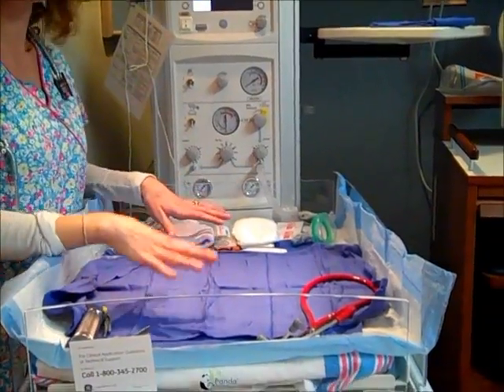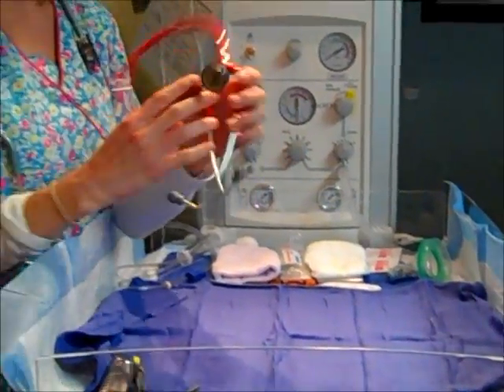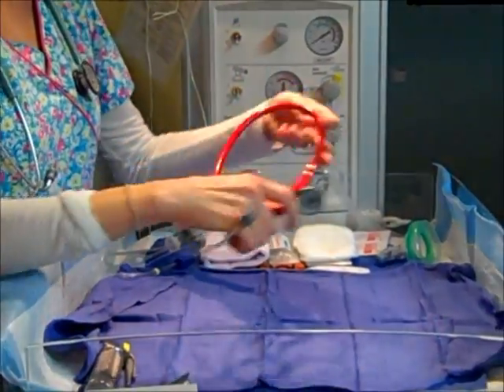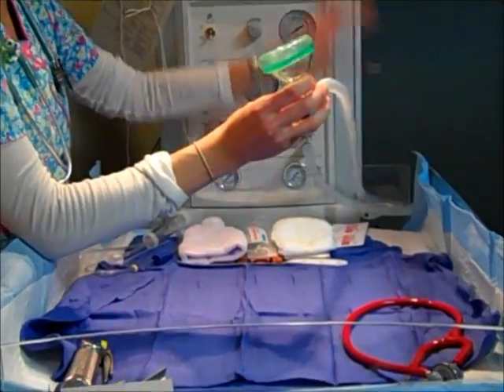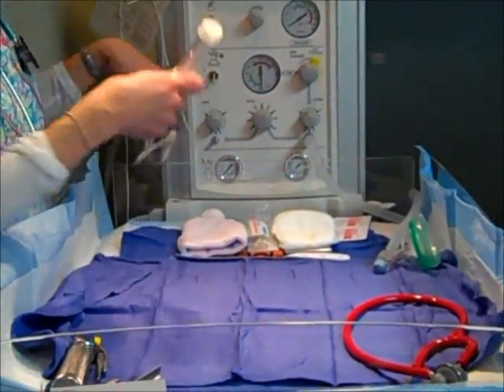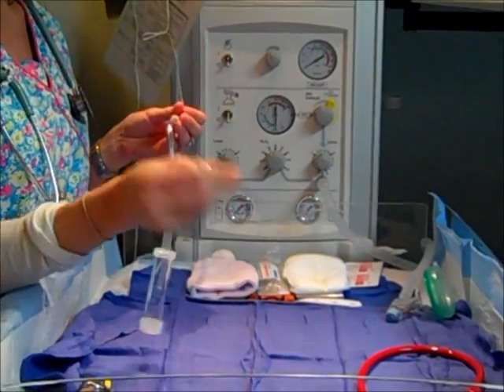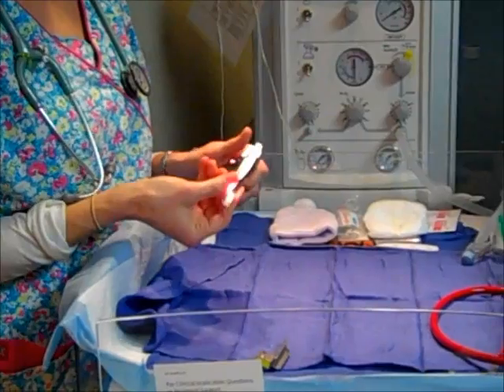And there's a couple pieces of equipment that you'd see on any warmer. First of all, you got a stethoscope, and as you can see here, it's little compared to this one. It's a baby stethoscope, so you can listen to the heart and the lung sounds with that. We've got oxygen here that's programmed into the warmer if we need to give the baby blow-by or pressure. We've got a tool for suction here, and we can put this in through the nose or the mouth to suction out the stomach if the baby has meconium when it's born.